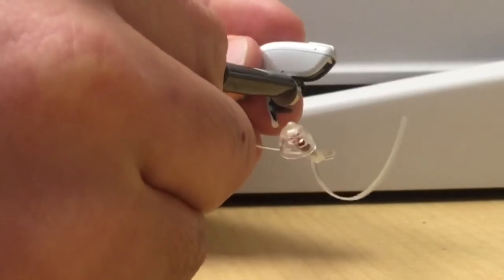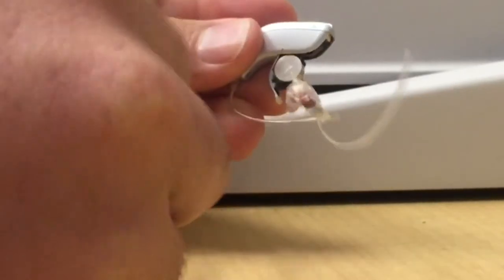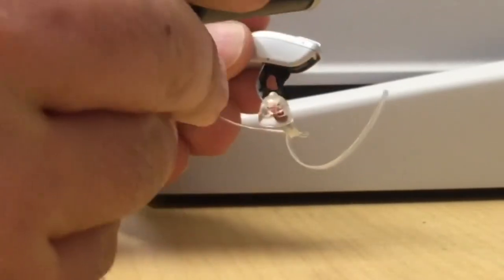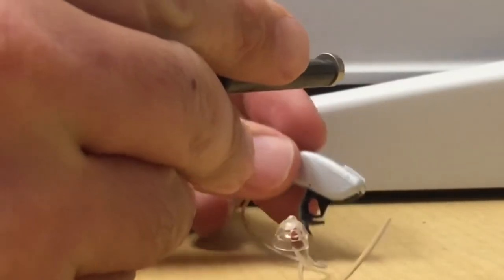It also works with behind-the-ear hearing aids. You can insert the battery in there, slide the door off, or pull the battery out with it. It just gives you a little bit more leverage.